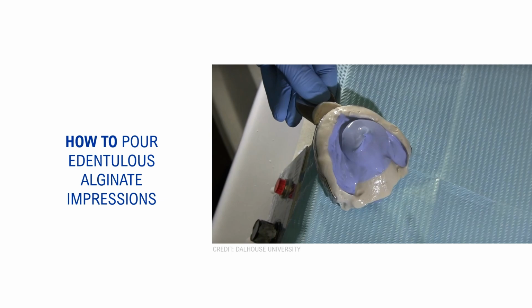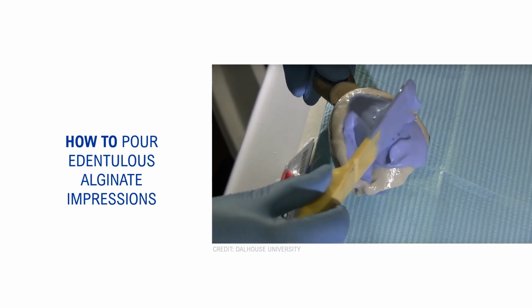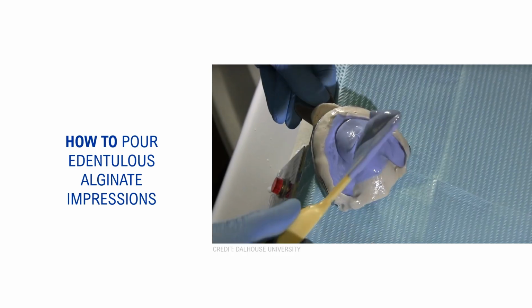Once the entire layer of the alginate has been filled with stone, you'll place back your boxing wax, and outside of the vibrator, you'll add the remaining stone to fill it up to the top. You're able to tap on the bench for this second part to make sure the stone is seating properly. Play the video again. This is just that first layer. So as you can see, it runs towards the palate. Normal. Just make sure you have that first layer of stone over the alginate, place your boxing wax, and then add the remaining stone on the bench.